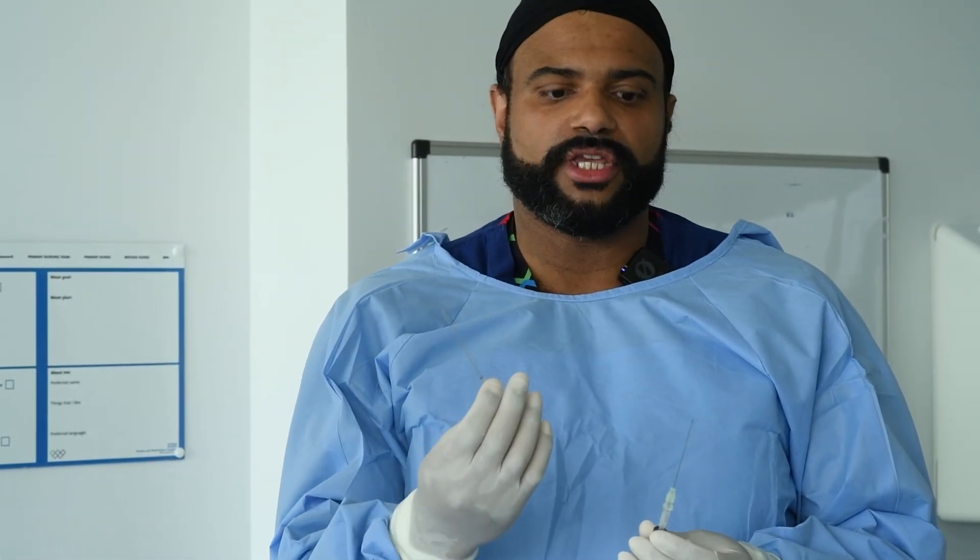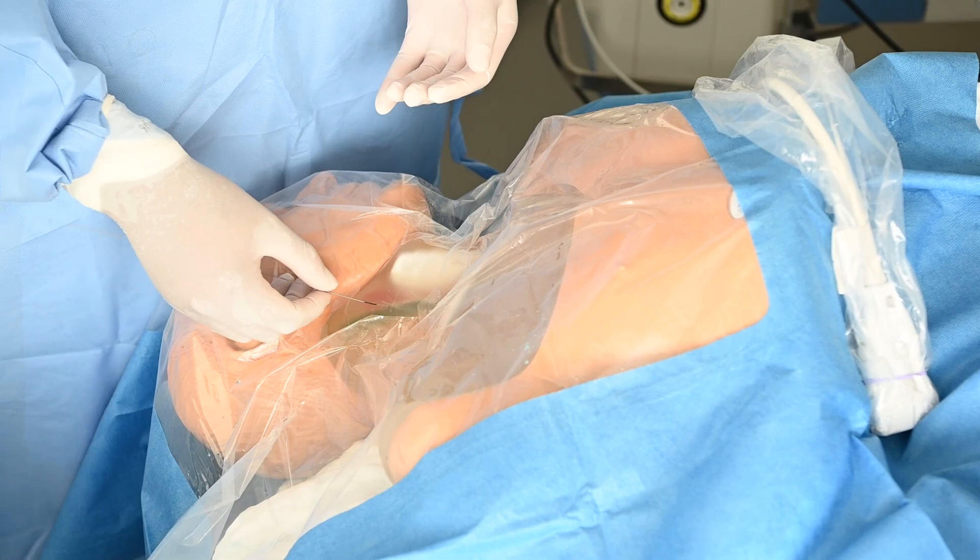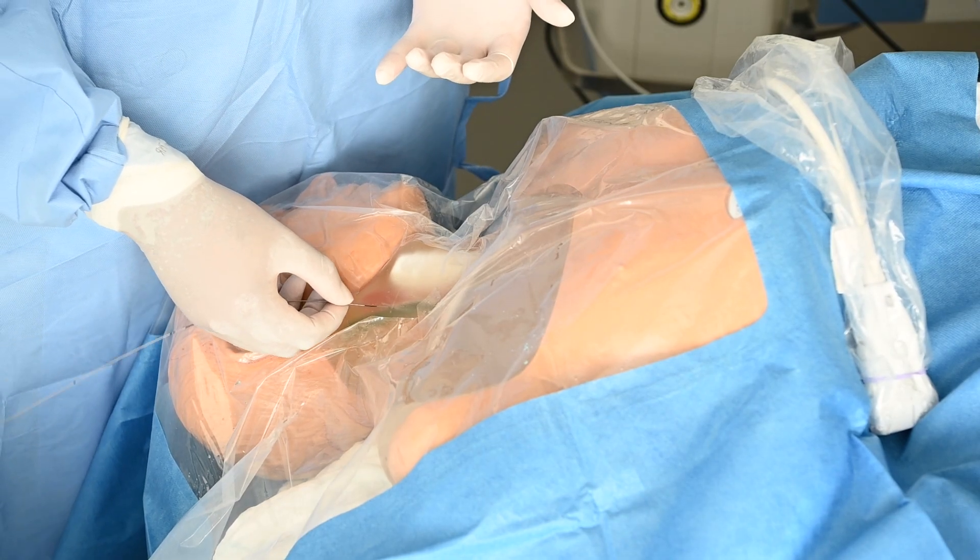So we spoke about earlier how you normally get two needles — one hollow needle, one with a cannula on it. Now, the best way I find to use the cannula, if you're not using it primarily for vessel puncture, is when we come to inserting a central line and find that the guide wire is not quite advancing, or we're just not quite happy that we managed to get it into the vessel and we're not sure if it's gone through the back or into soft tissue.